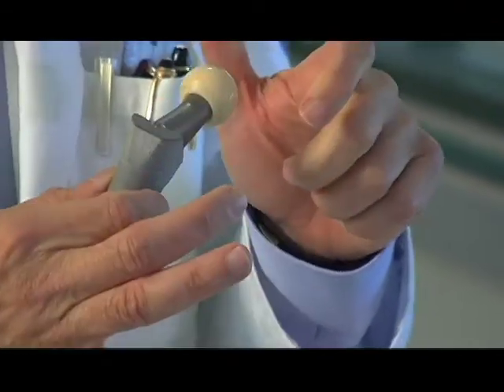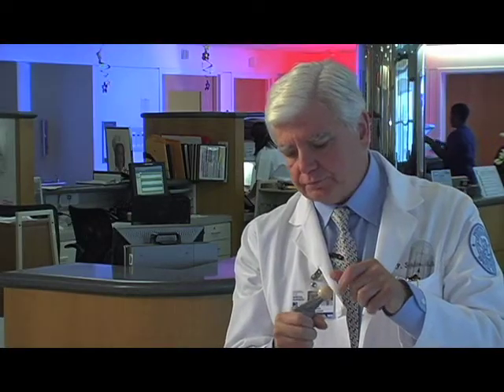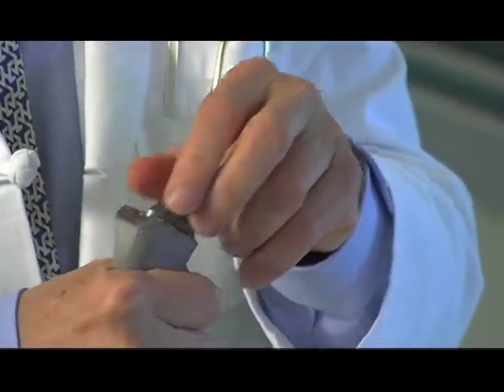And basically what that means is that we channel out the femur bone. And then when I drive this into the bone, it takes on that configuration and the bone is absolutely tight against that. So you get a press-fit.